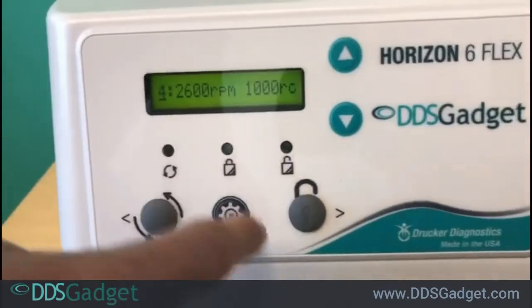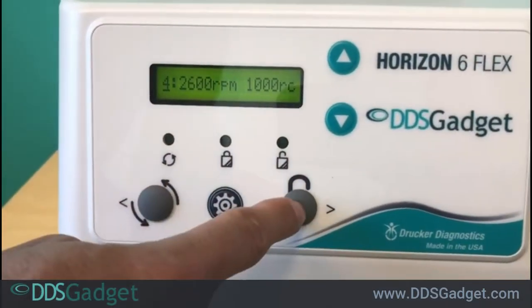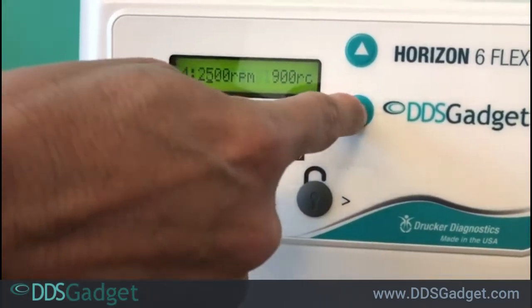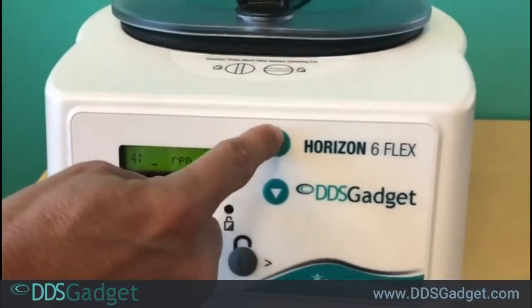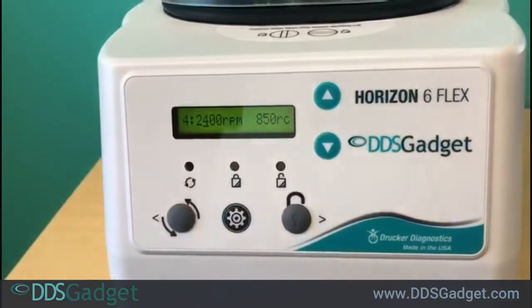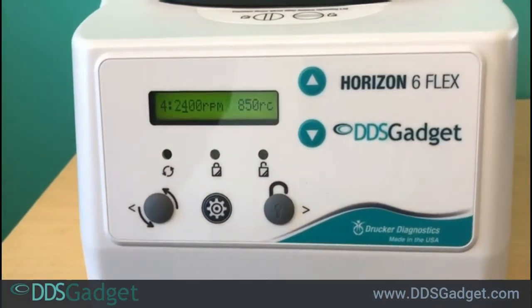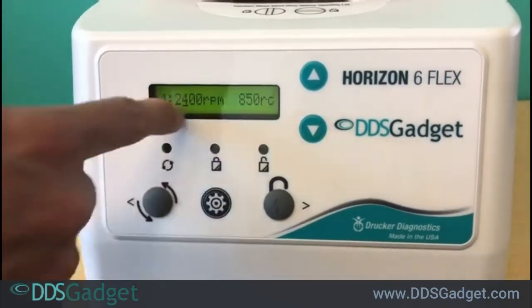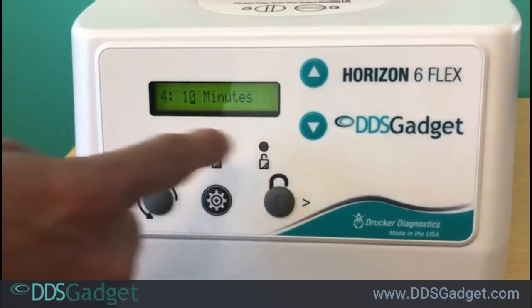Let's say we press the gear cycle and now want to change the RPM. We move the right arrow to the RPM setting and we can move it up. Let's say we wanted to do 2400 RPM — just making up a cycle here.